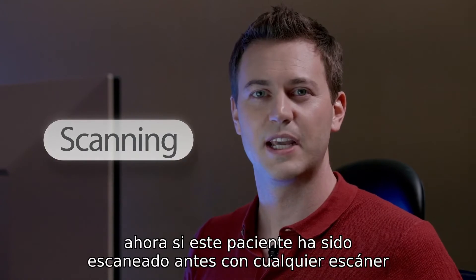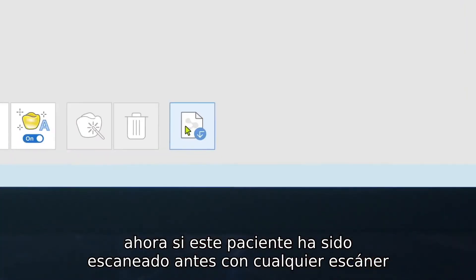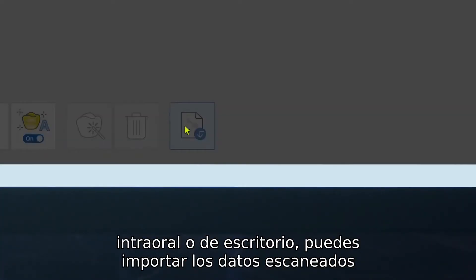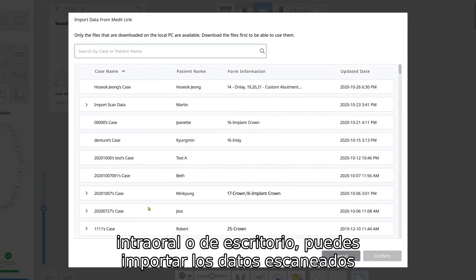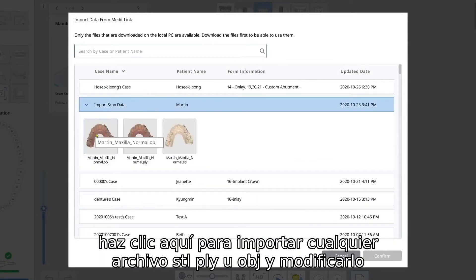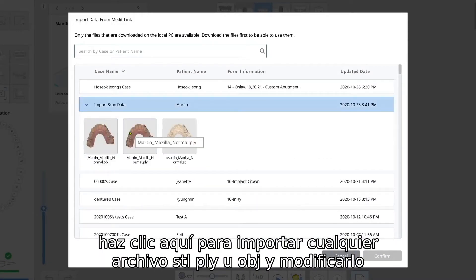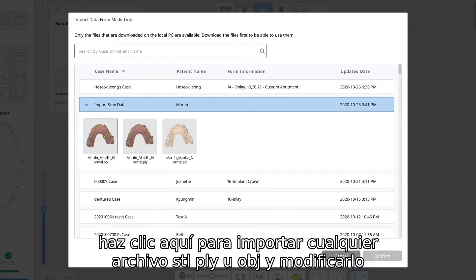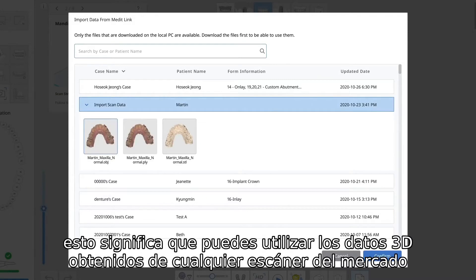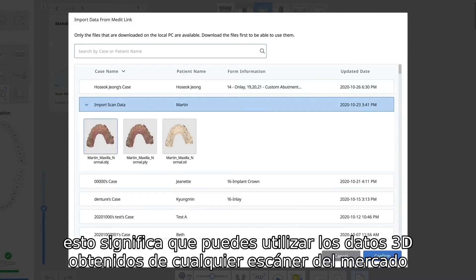Now if this patient has been scanned before with any scanner — intraoral or desktop — you can import the scan data. Click down here to import any STL, PLY, or OBJ file and modify it. This means you can use the 3D data obtained from any scanner on the market.